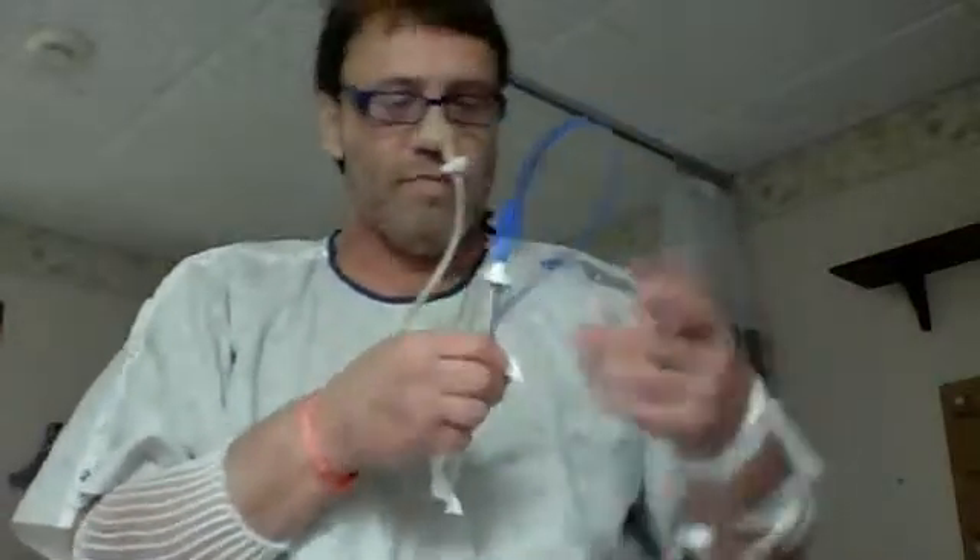Plus, right now I've been hanging it on me here after I duct tape it. I want to put a little clip right here so it's up high enough and it's not putting pressure on the patient's nose. And that's my new design.